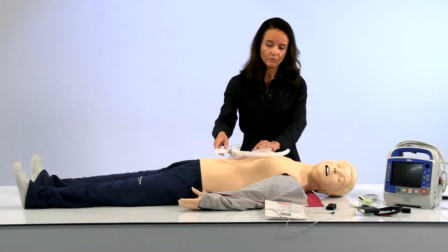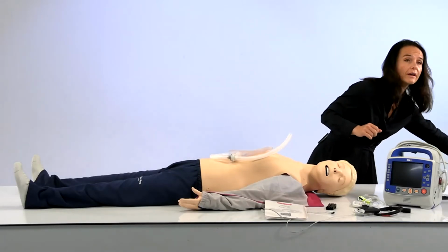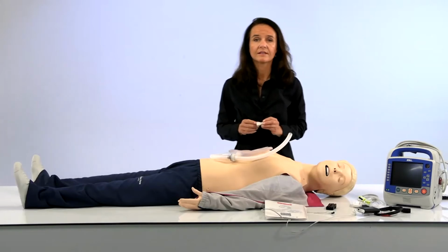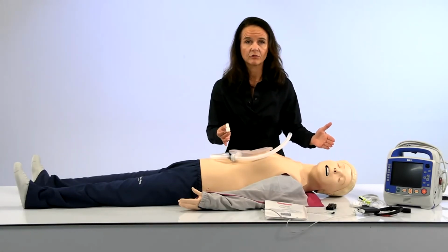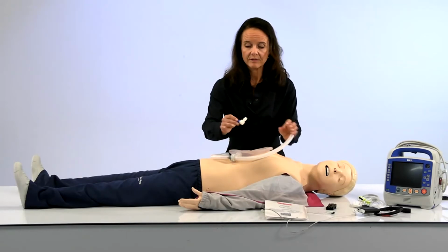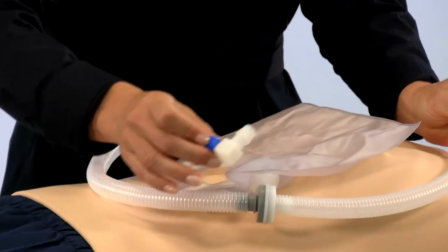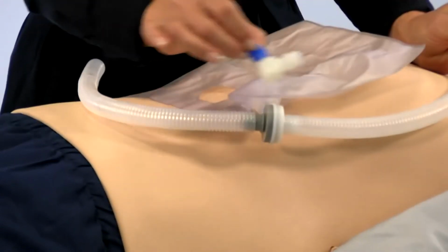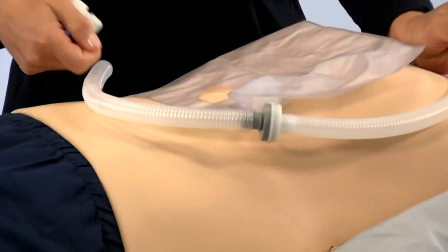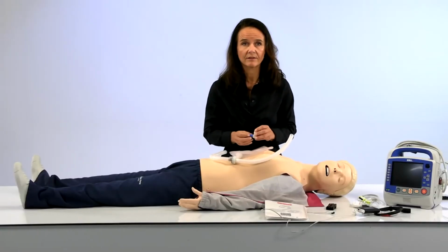Another thing I would like to show you with this is kind of an open system, but we know that for someone that uses ventilator machines, they need this system to be closed to be able to pre-pressurize it. So for this purpose, we have developed this ventilator adapter, we call it. So this adapter is added here as an elbow to close the system when this exhaust is removed. This will provide you the opportunity to train with the ventilator machines in your scenarios.